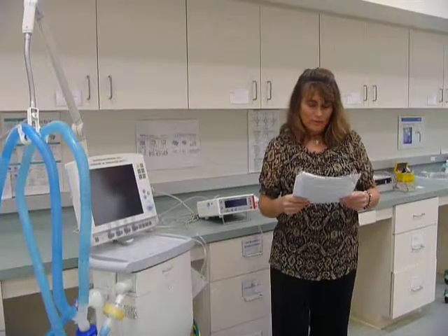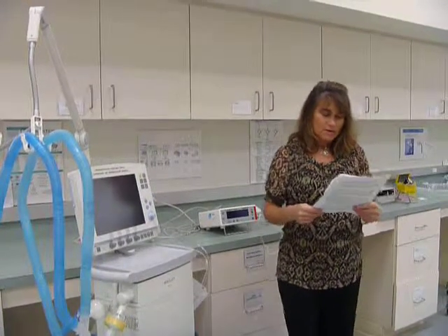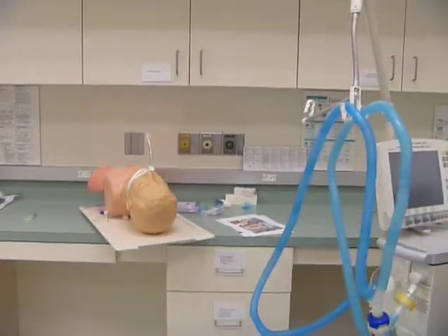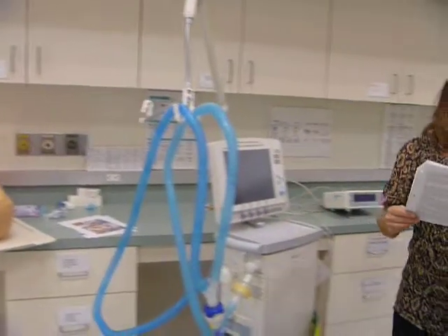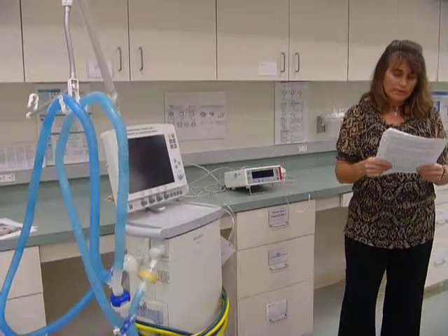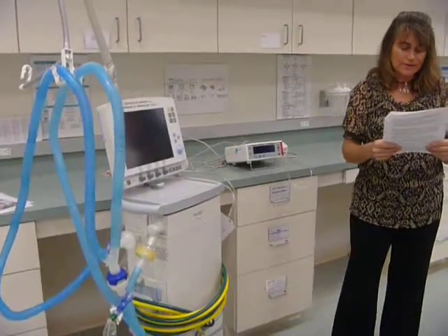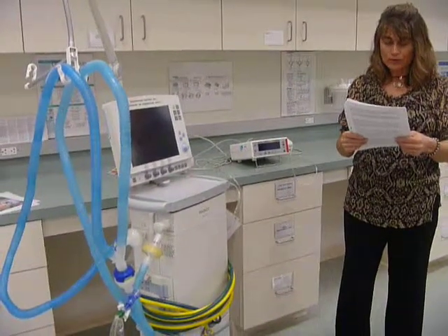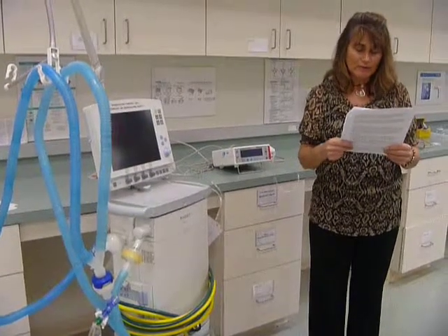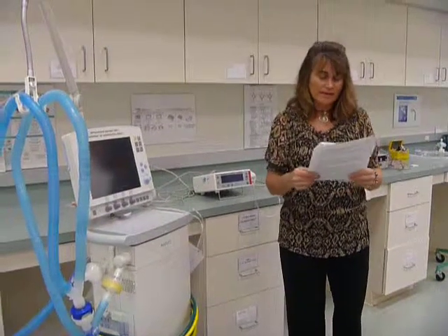Will bacteria grow in the humidifier and contaminate the patient's lungs? So we don't have a humidifier on because we're going to be using a heat and moisture exchanger. But over there, we're going to put on the heated humidifier. Although the humidifier chamber is initially filled with sterile water, bacteria will not grow if the water temperature is kept higher than 42 degrees Celsius. A cooler temperature may allow bacteria to grow. However, these bacteria will never reach the patient because water vapor is too small to carry bacteria through the circuit.